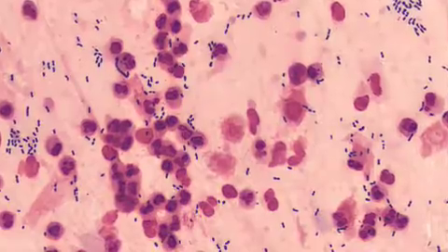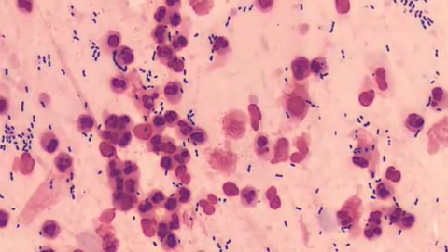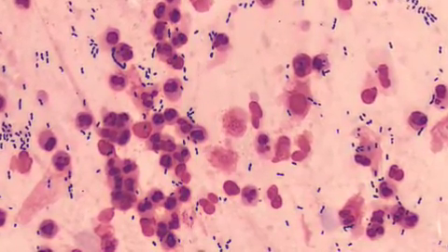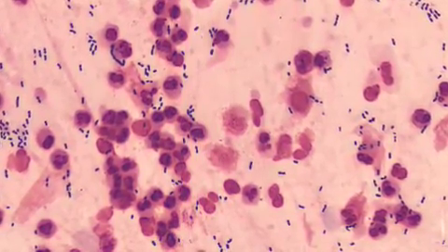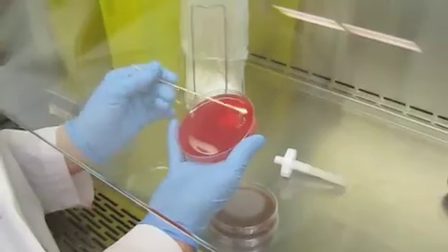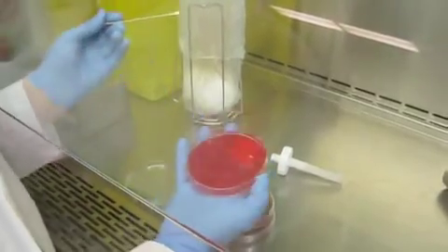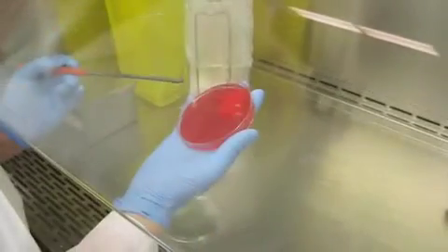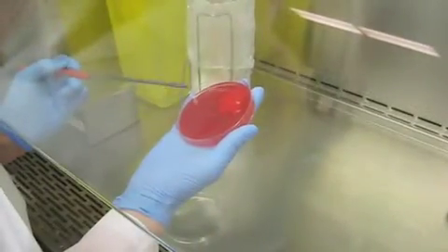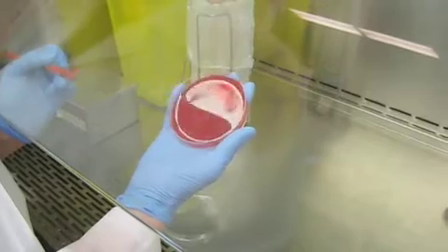A good quality Q-score has many neutrophils and few epithelial cells. Samples of sufficient quality, or critical clinical importance, are plated on a number of media for identification.